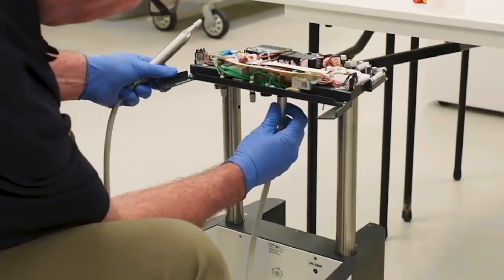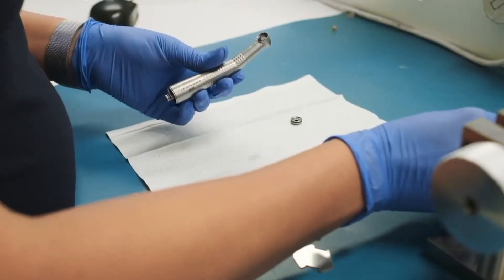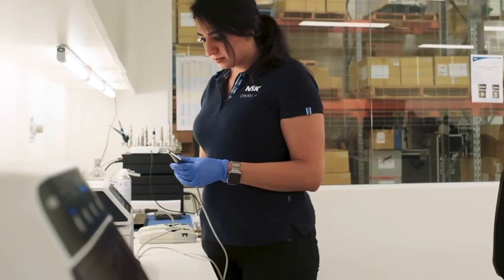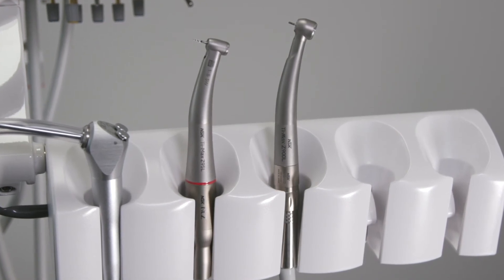This handpiece is a medical device and any repairs need to be performed by a trained handpiece service technician. Do not attempt to disassemble or alter the handpiece in any way. It's important to use the correct burrs which have been rated to the speed at which the handpiece is being used. NSK recommends friction grip burrs with a max length of 25 mm that have been rated up to 200,000 rpm. Refer to burr manufacturer's instructions regarding usage and rotation speed.